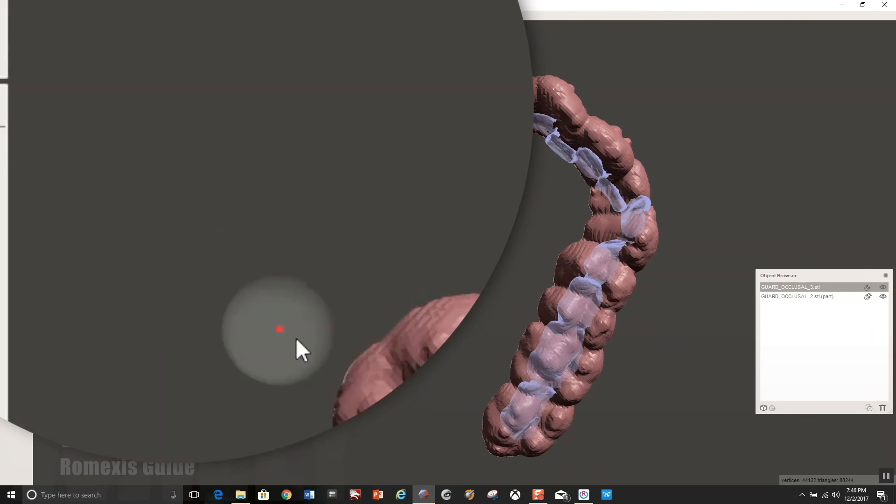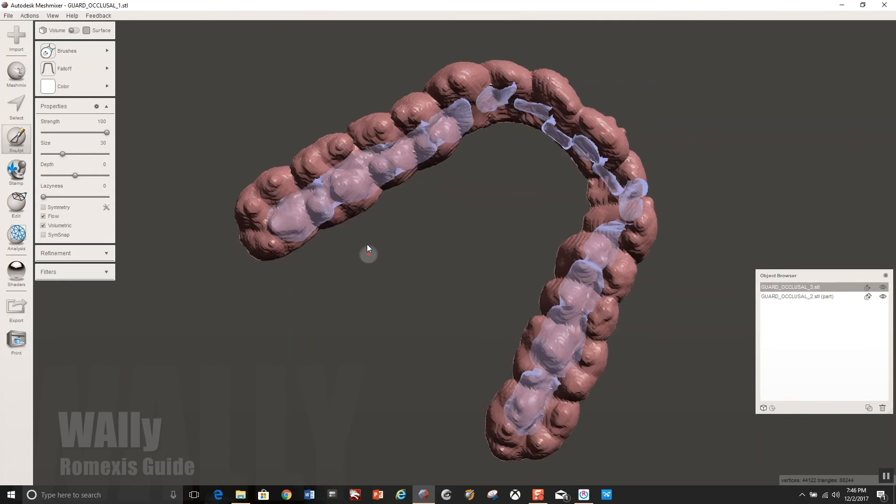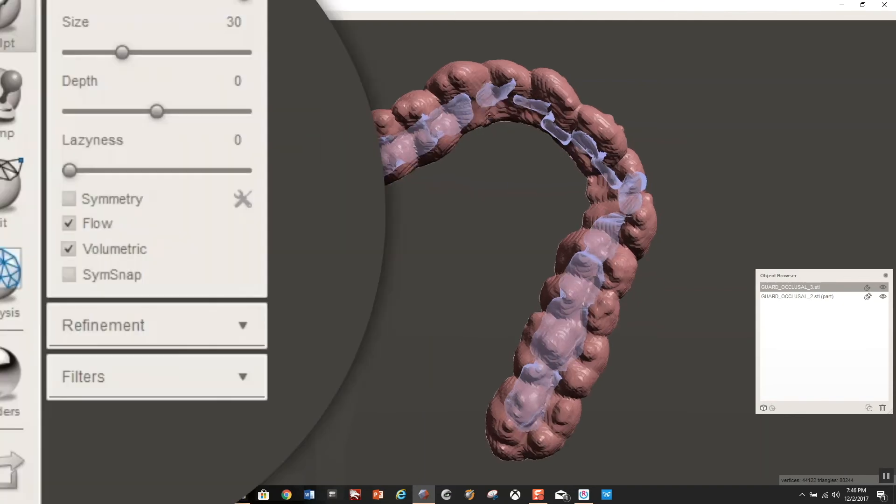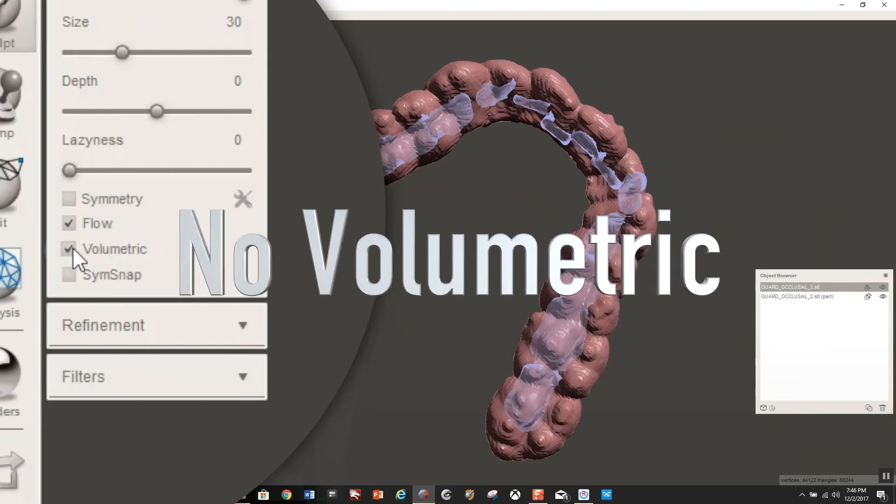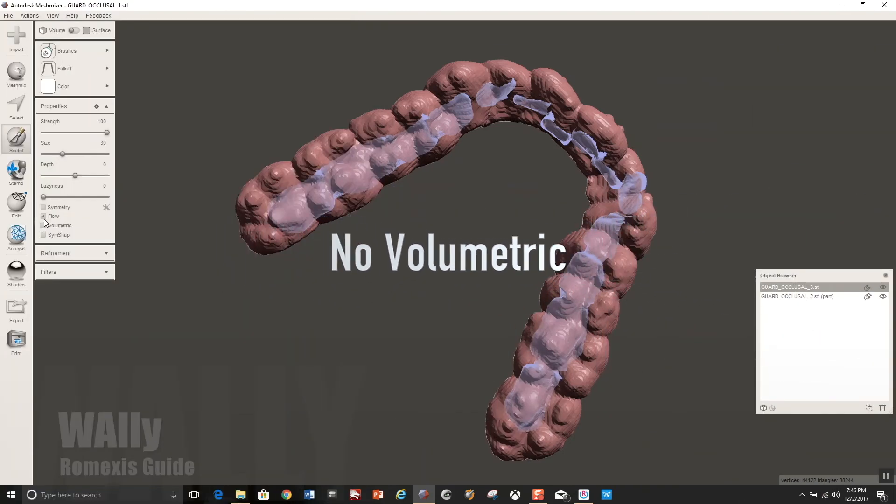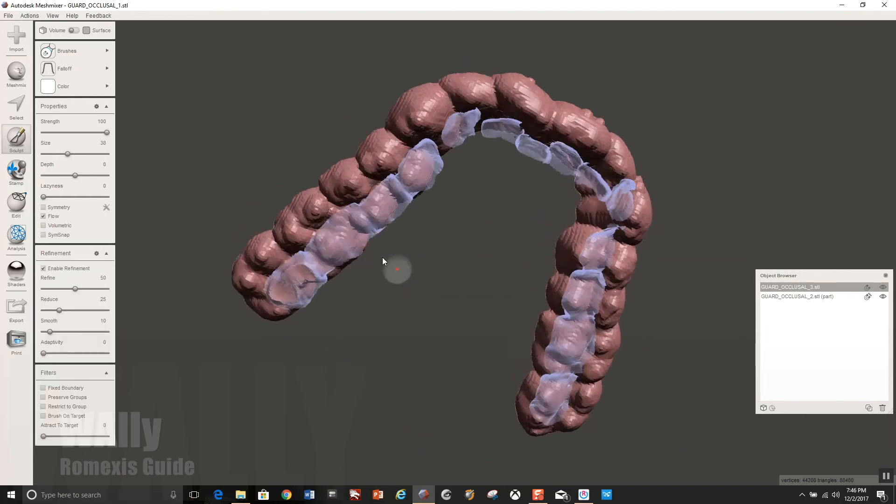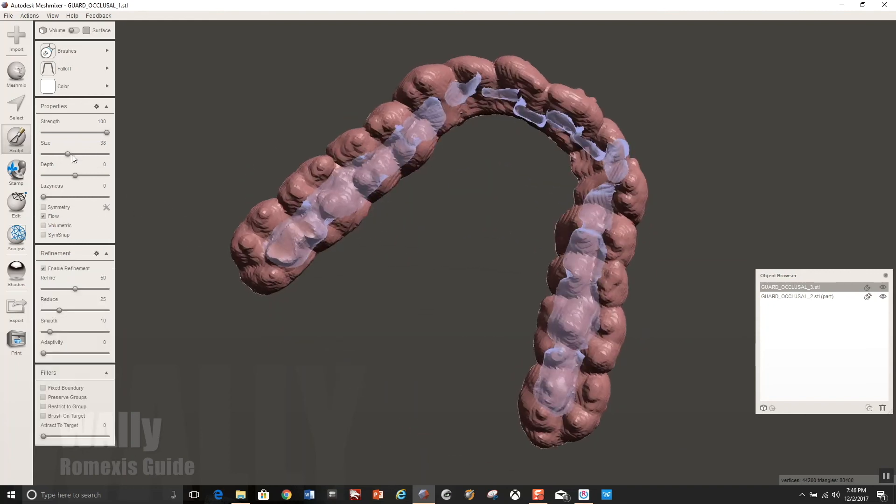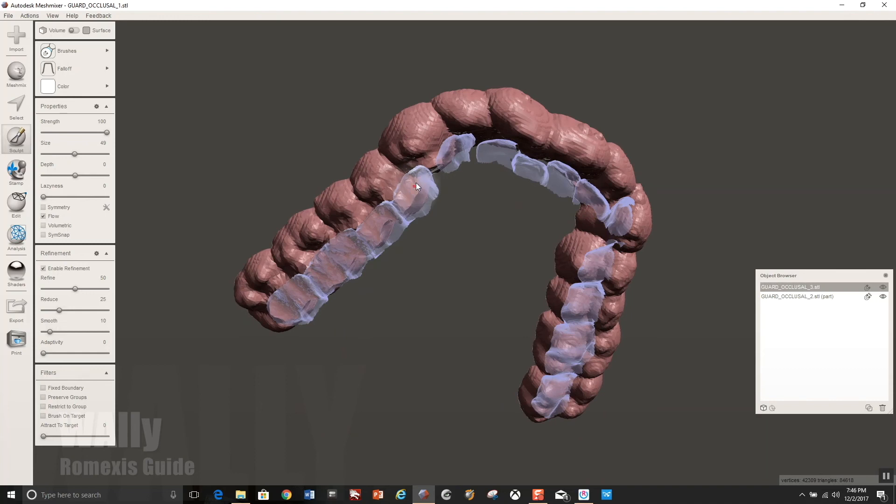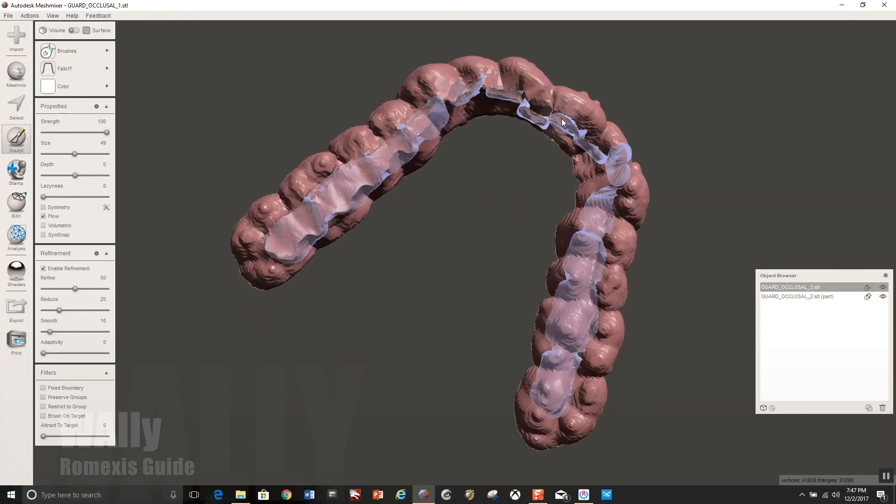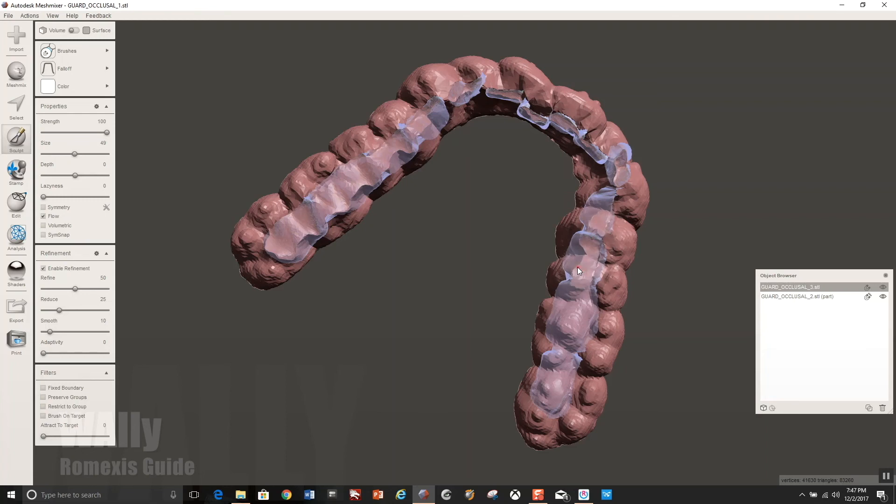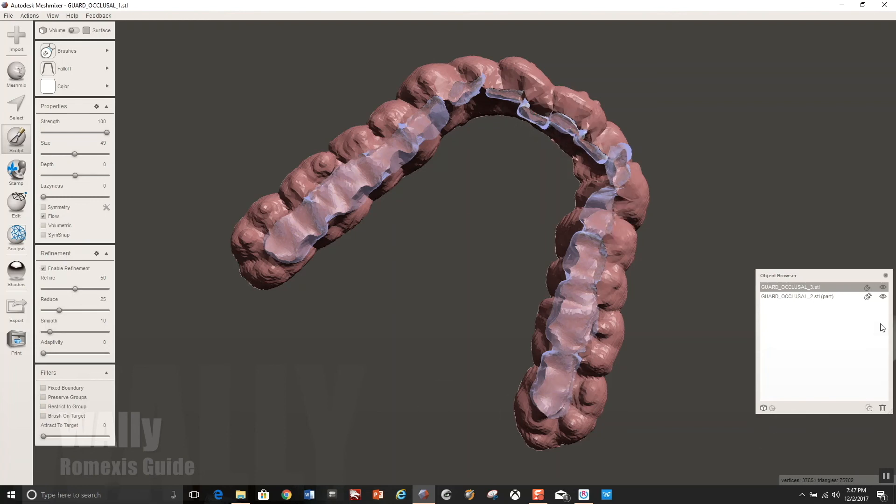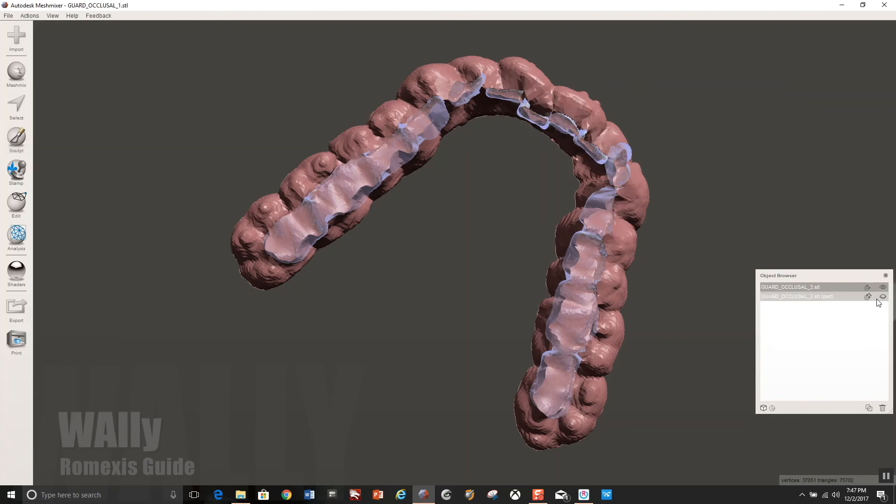And it's really cool. What it's essentially going to do is it's going to suck the guard down to that occlusal surface. Make sure volumetric is not selected. It'll destroy the intaglio of your guard. It won't fit. And what you're going to do is you're going to, I put it to a pretty decent size. You're just going to click. You'll see it's morphing the occlusal guard to mesh with that surface that you created from the STL extract of the lower occlusal surface table. It's really quick. You don't have to be too OCD here. And there we go.